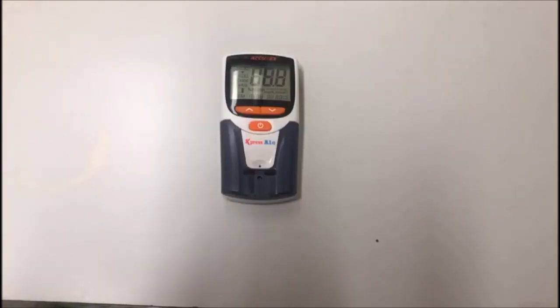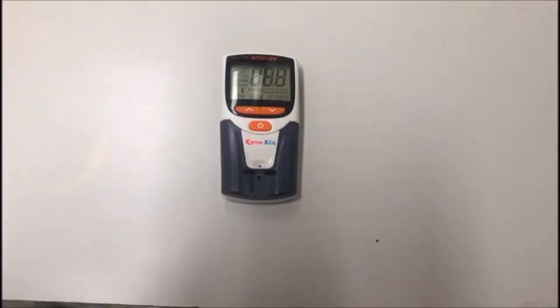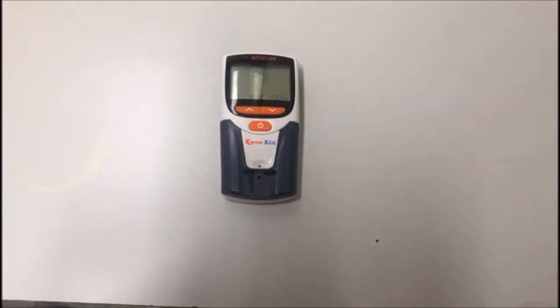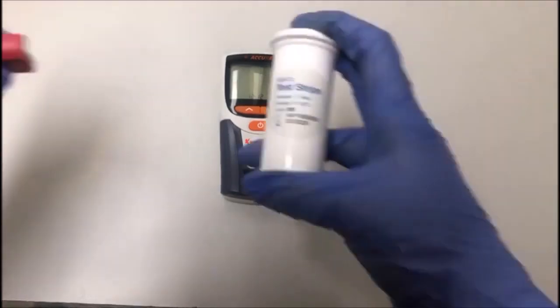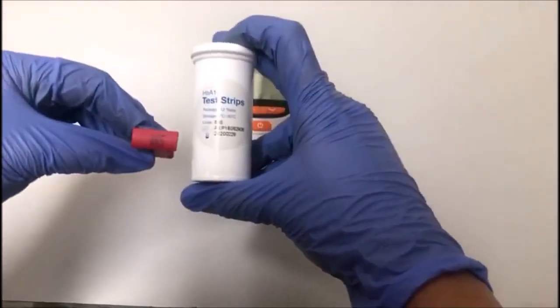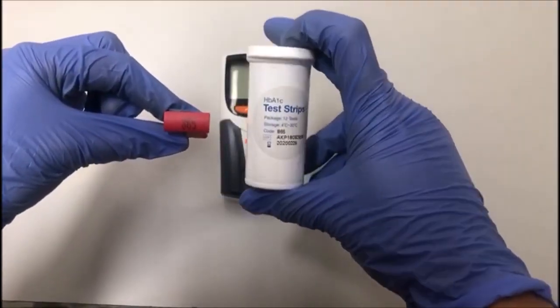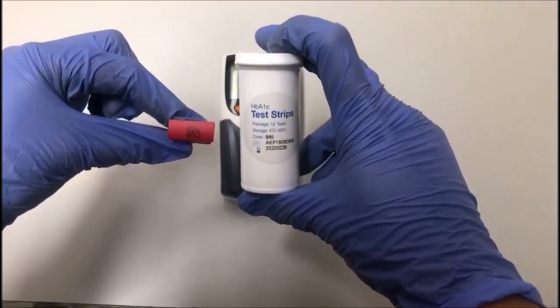Test system. Please insert the correct calibration code chip. The calibration code chip number and the code on the vial should match.